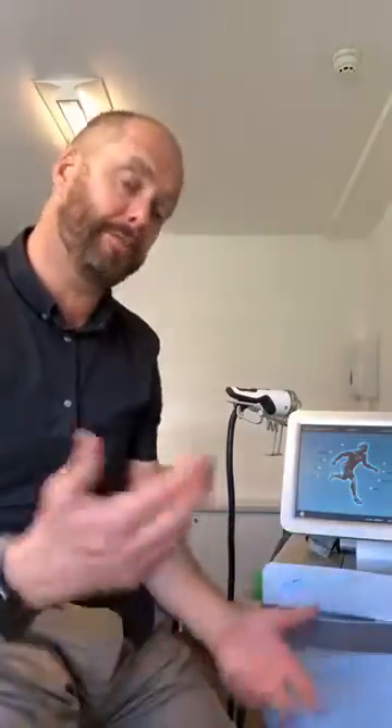It is around £24,000 to get your focused machine, as opposed to between probably £7,000 to £12,000 for your radial machine, depending on whether you get the MP50 or MP100. So there is a big difference.